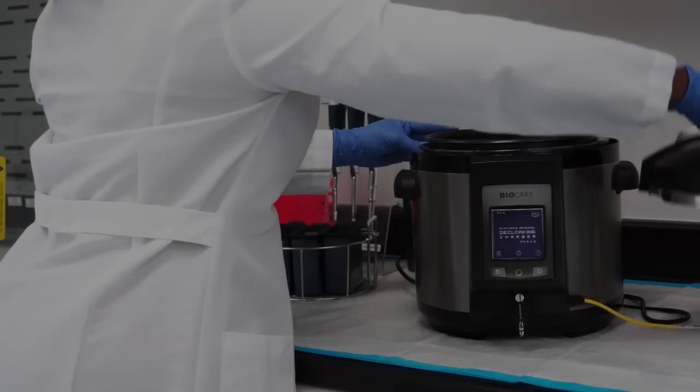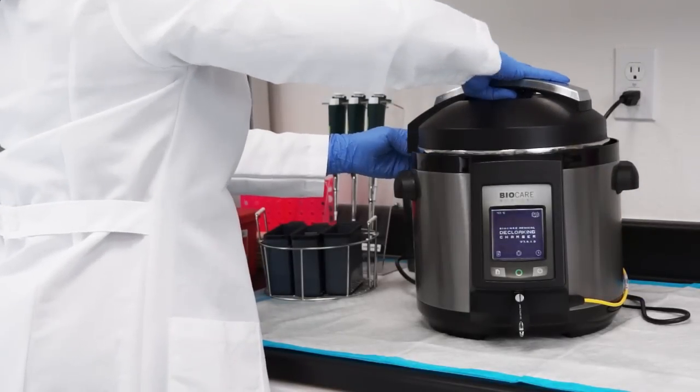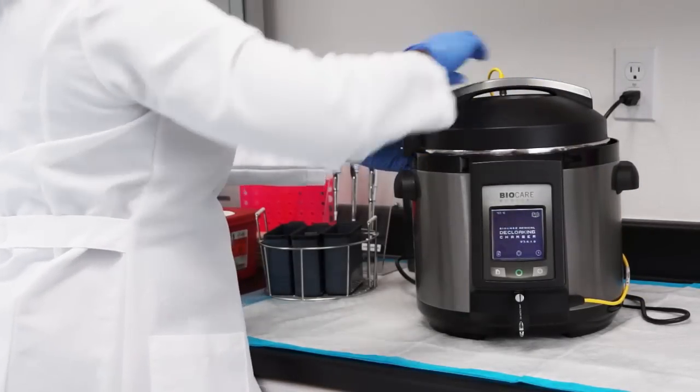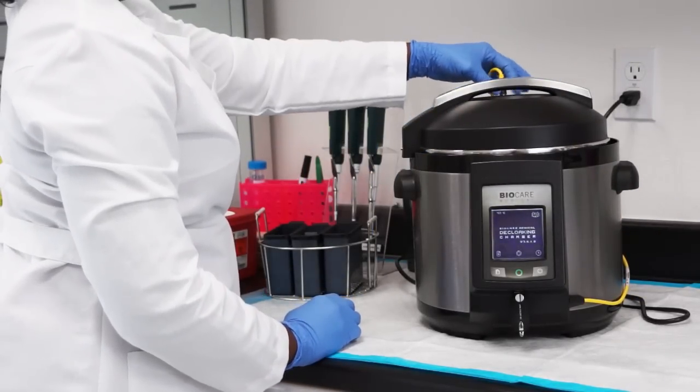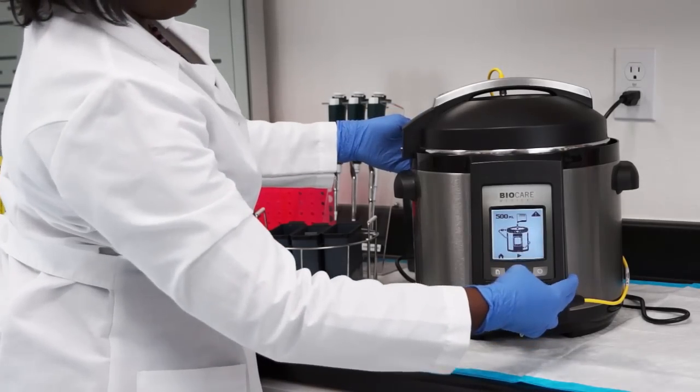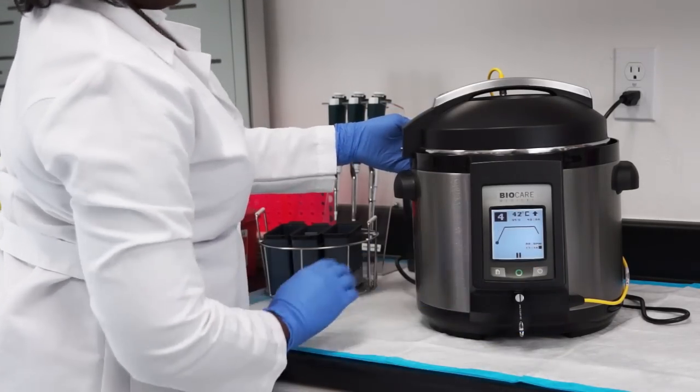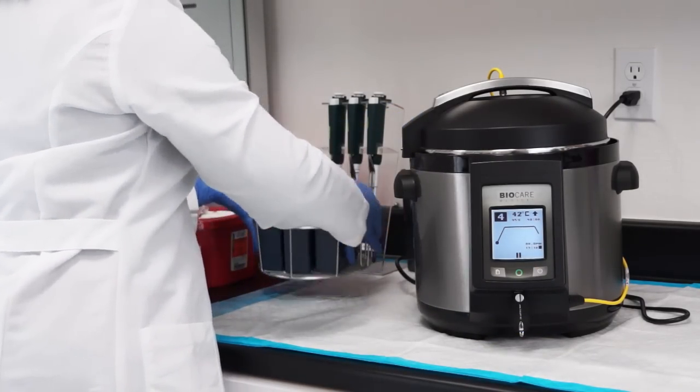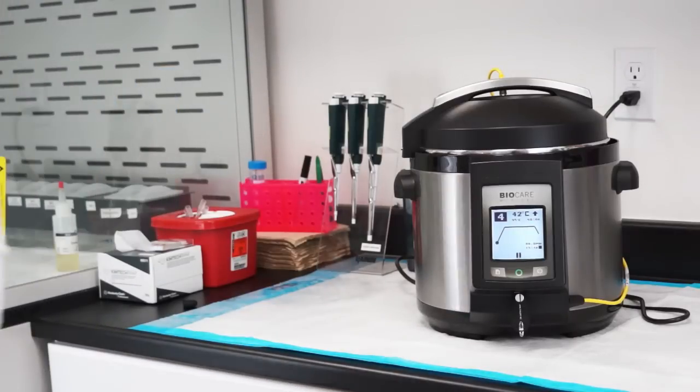With a total capacity of 72 slides and only minutes of hands-on time per run, the decloaking chamber next-gen offers a walk-away capability similar to fully automated staining instruments. The decloaking chamber next-gen's ease of use and reliability make it an excellent tool for heat-induced epitope retrieval.